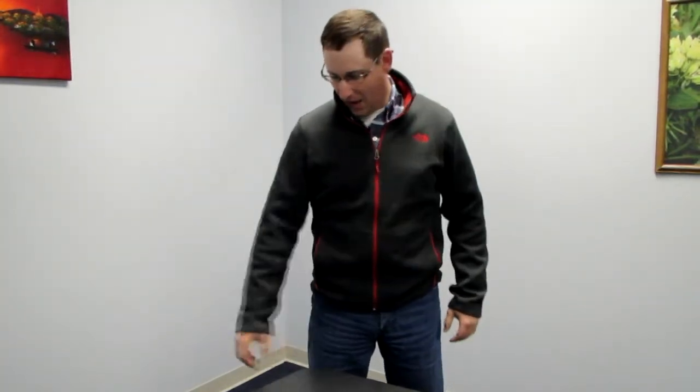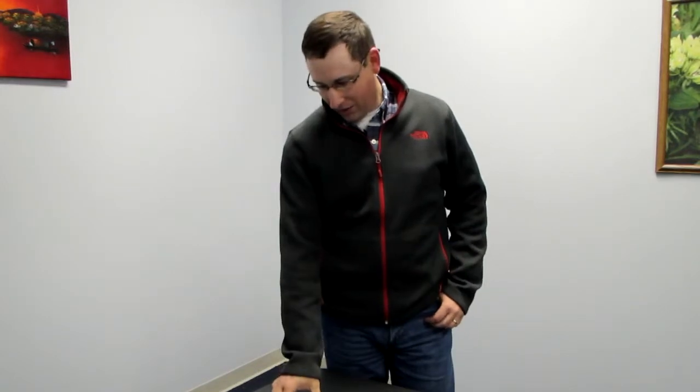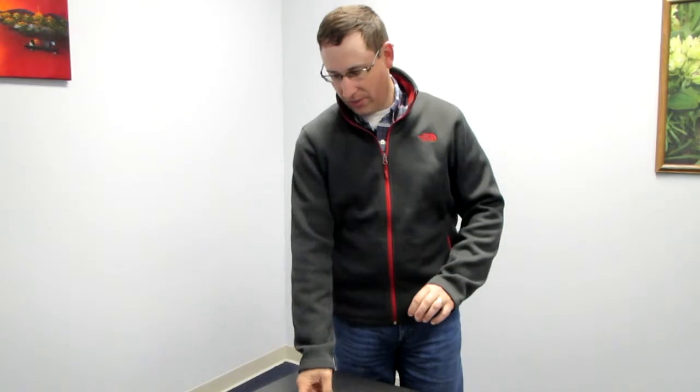Tom from AgTech here. We're going to talk about some media today — our BioLife branded media, our holding and our ethylene glycol. We've got some updates as far as packaging goes. Traditionally we've always sold our medias in the 50 and 20 ml bags with the syringe septum on the ends, so that you could pull out whatever volume you needed for various types of dishes and various situations.